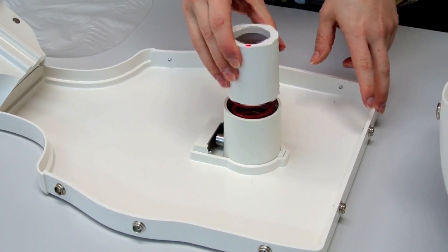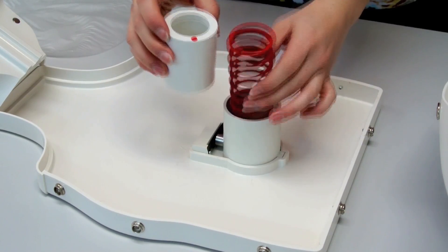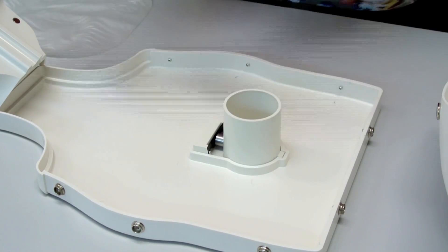The compression springs can easily be changed. Red for adult, and green for child.